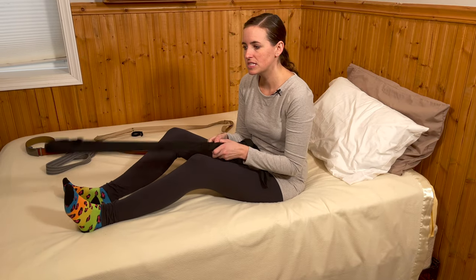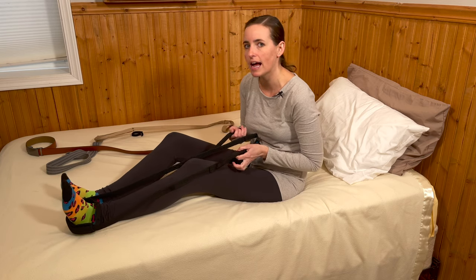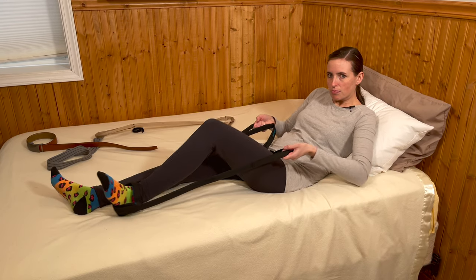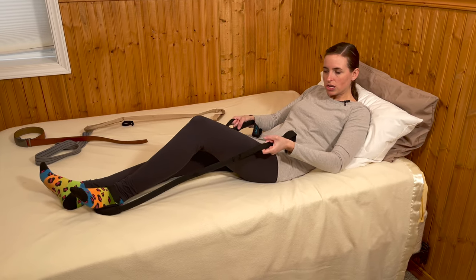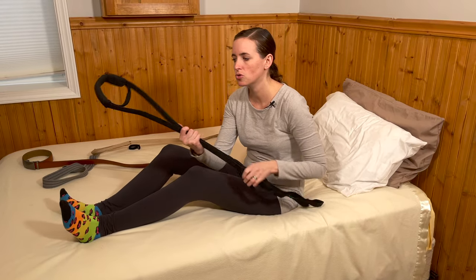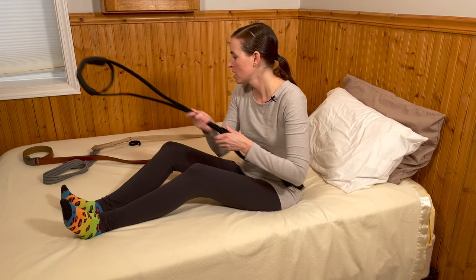The other reason they gave it two open spots is that leg lifters are often used for an exercise program to assist with knee bends. If you're doing knee slides in bed with two hands, you can use it to pull and flex, and to push — because it's rigid — to extend. That's why it has the closed loop at the tip. So this is a multi-use tool, a little bit more expensive, but you get a little bit more bang for your buck.